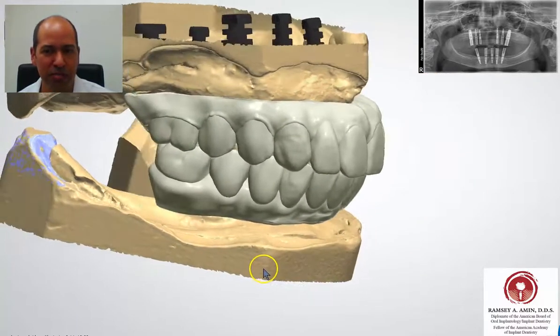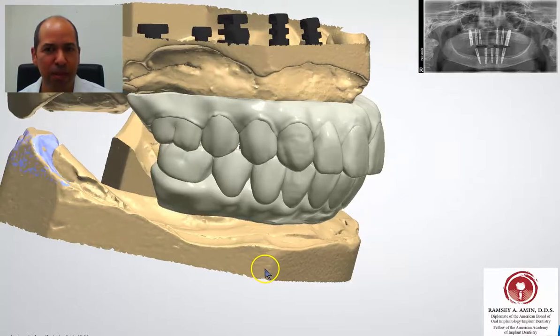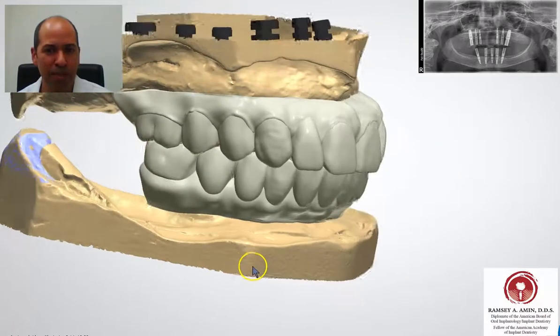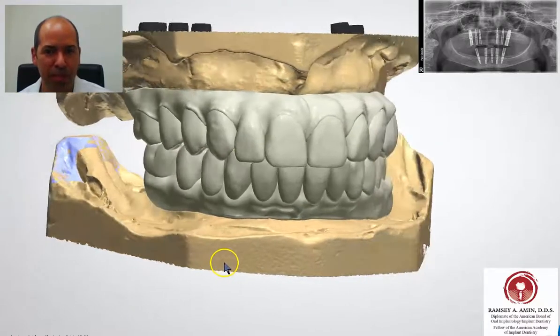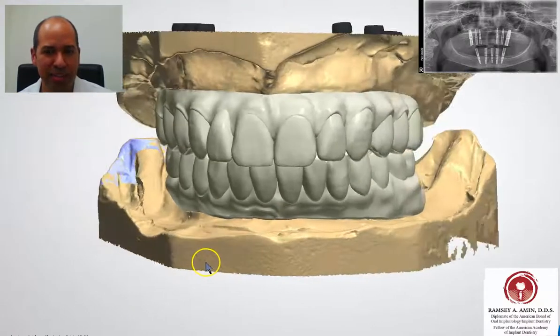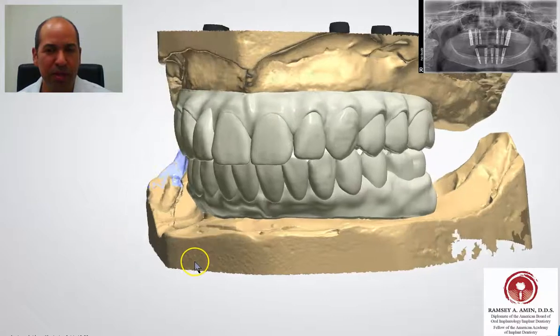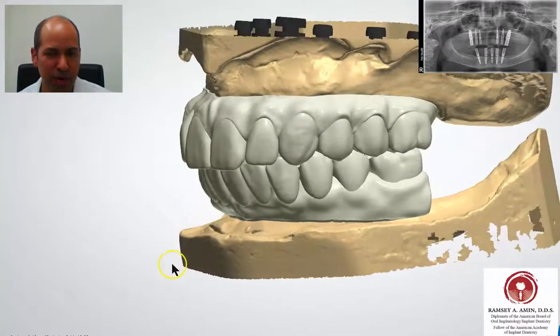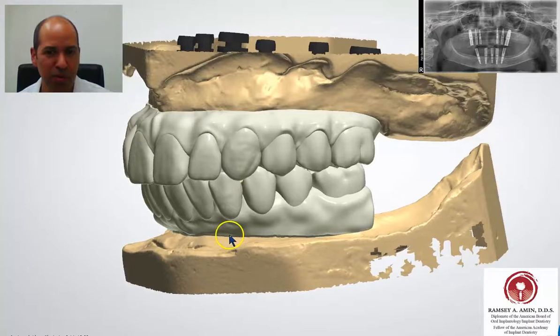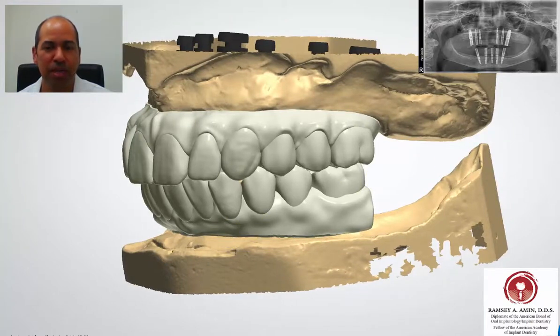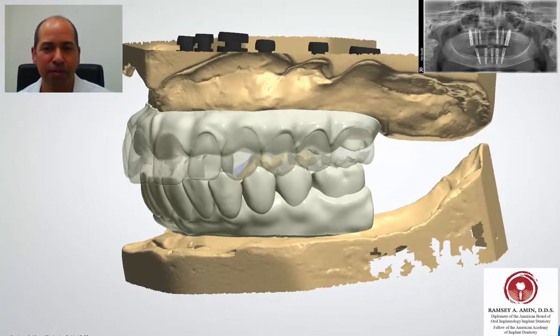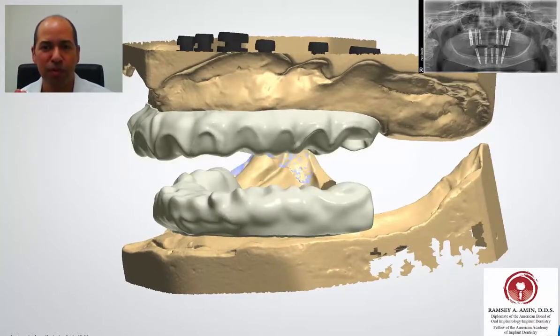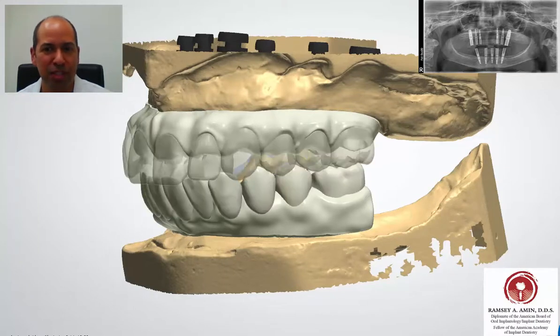We're determining how the gums should transition into the bone, how many teeth we're fabricating on the bridge, how big the cantilever is, and a number of other factors. She has an overbite, so the plan is also to push her lower front teeth forward so that she doesn't have the overbite as much anymore.